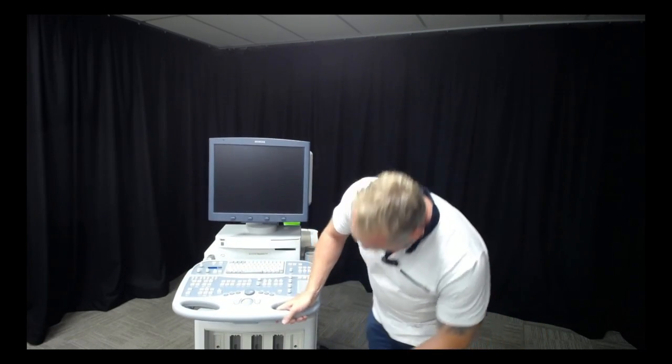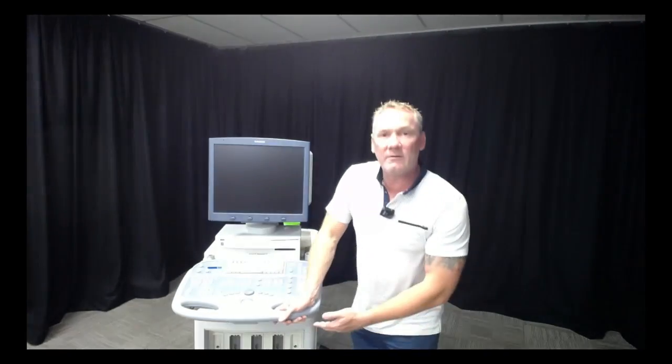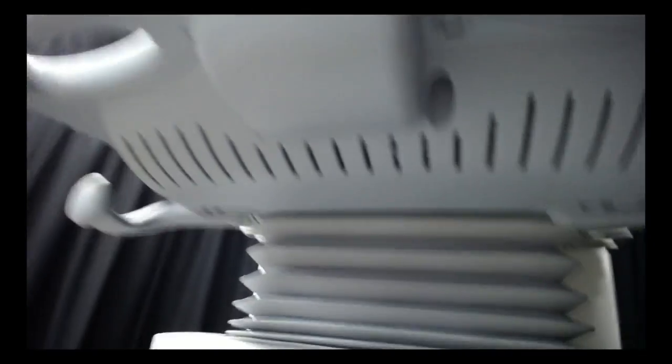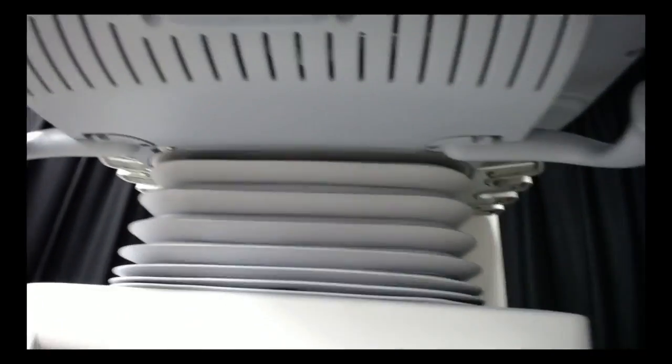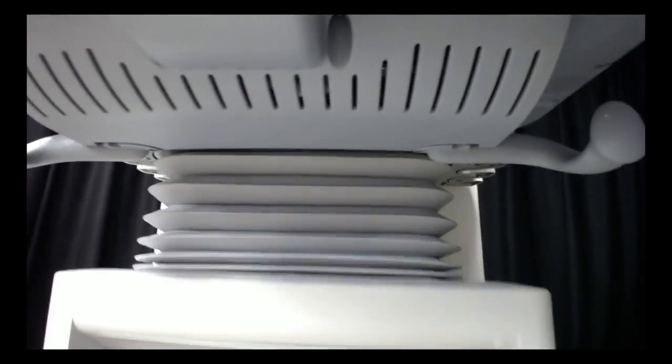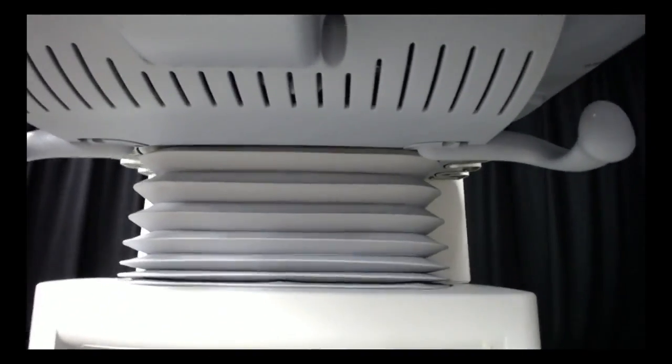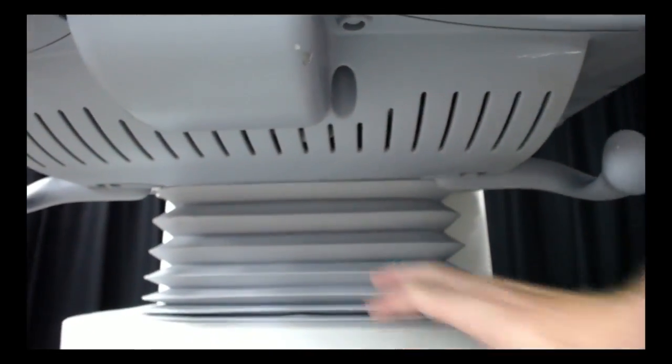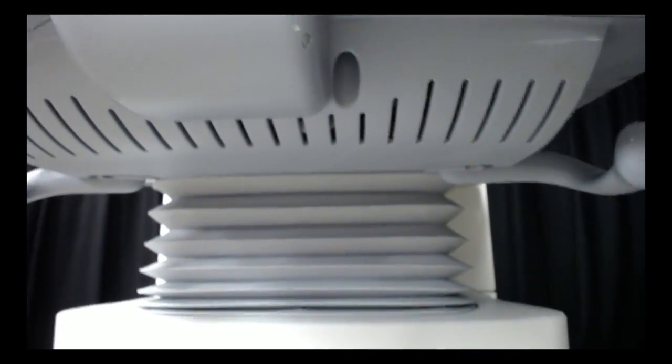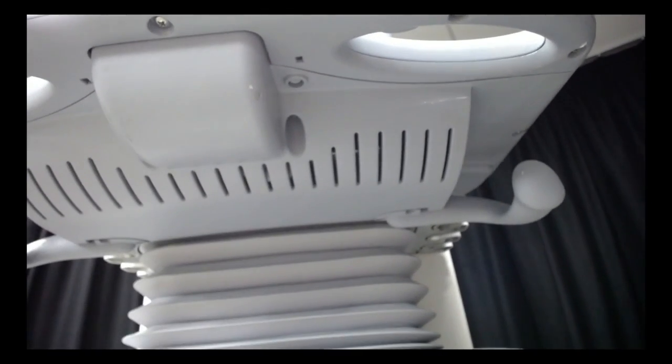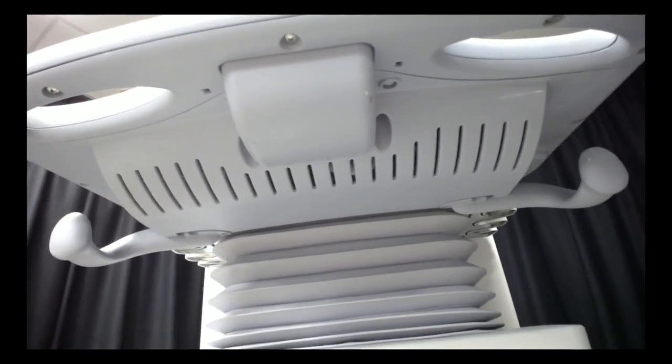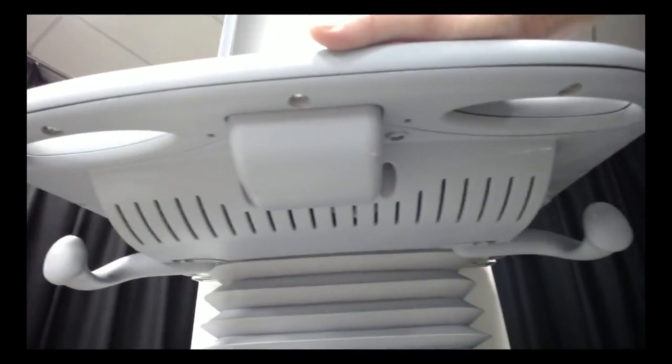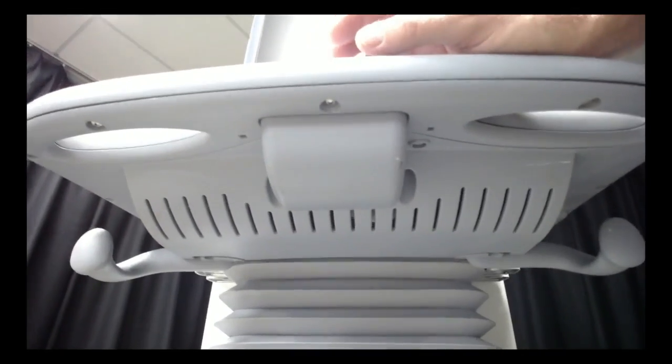Make sure you get under there where the concertina of the machine stores dust and dirt and can get quite yucky. We also want to give a good clean under the console as well. Everyone focuses on the top side, but the underside is just as dirty.